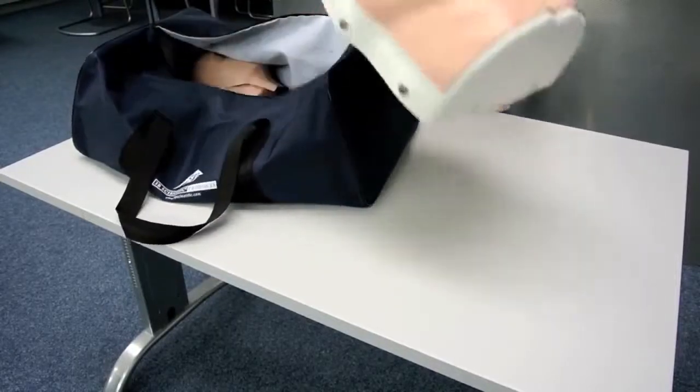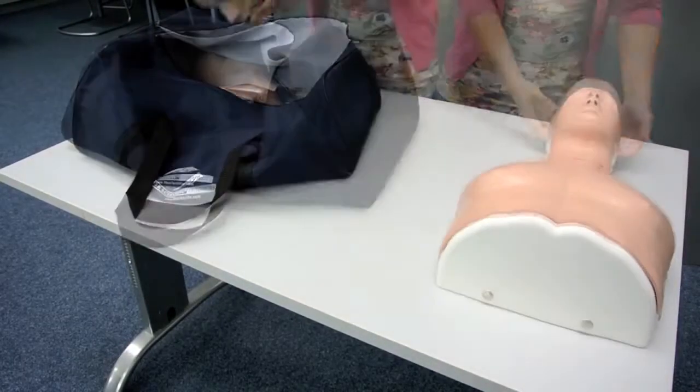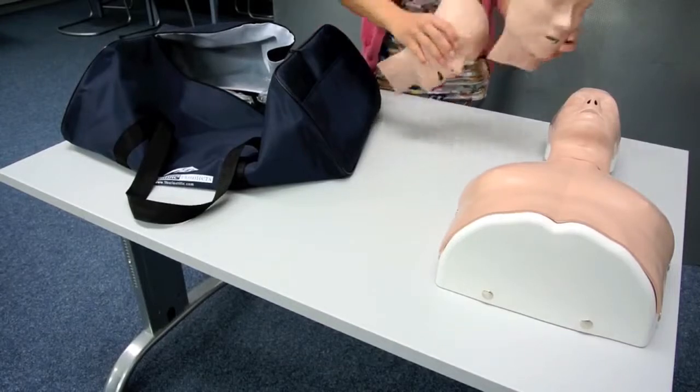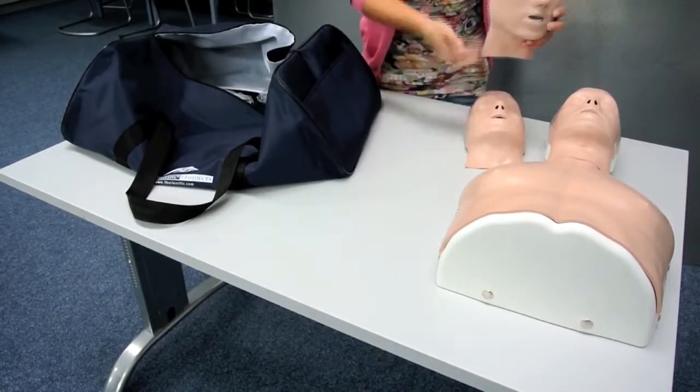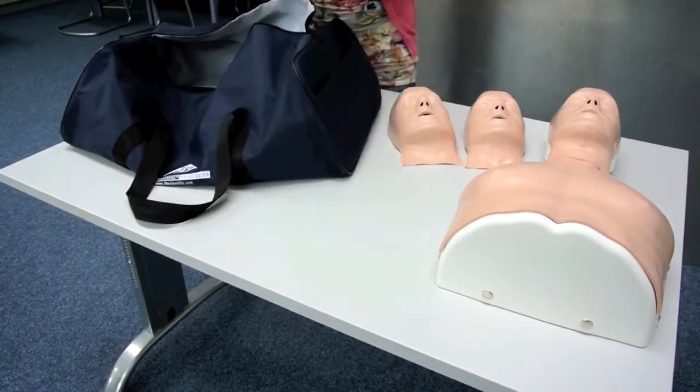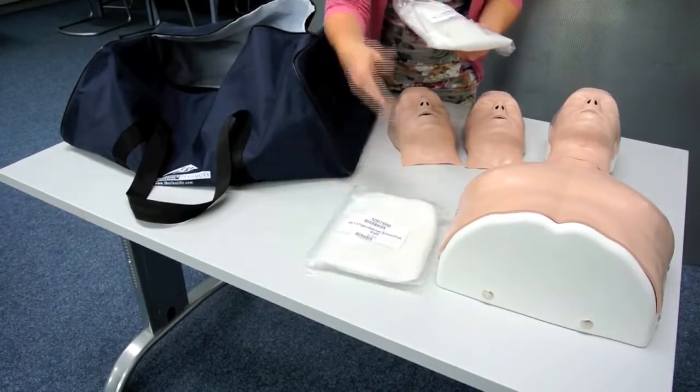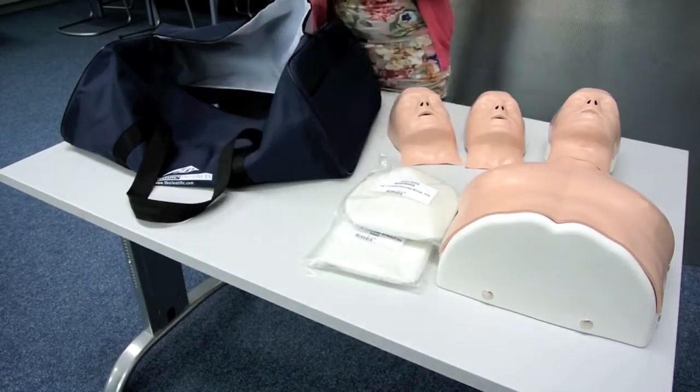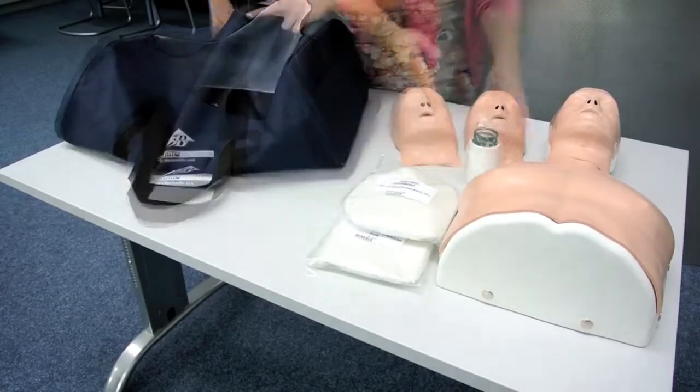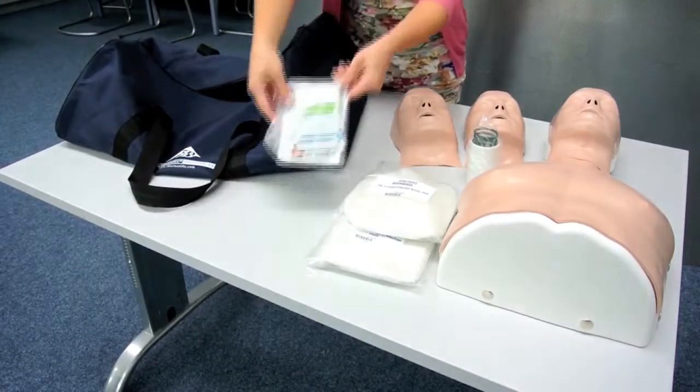Basic Billy product demonstration video. Basic Billy is supplied with two additional face masks, replacement adult and child lung bags, additional compression spring, and cleaning solution.